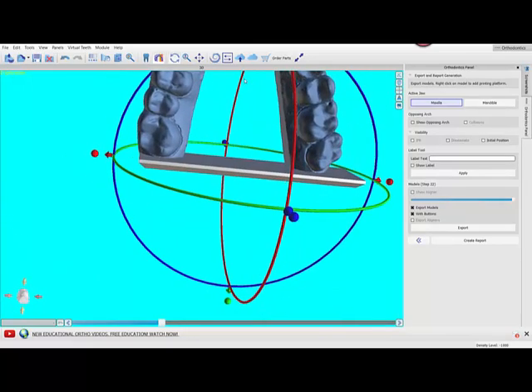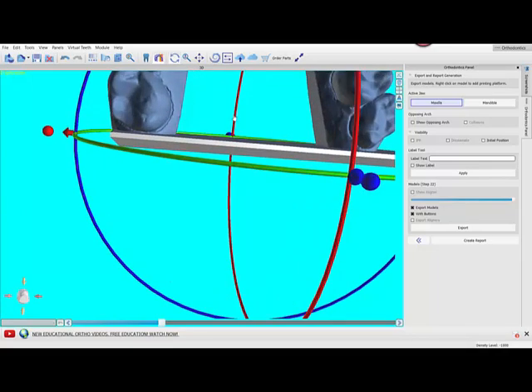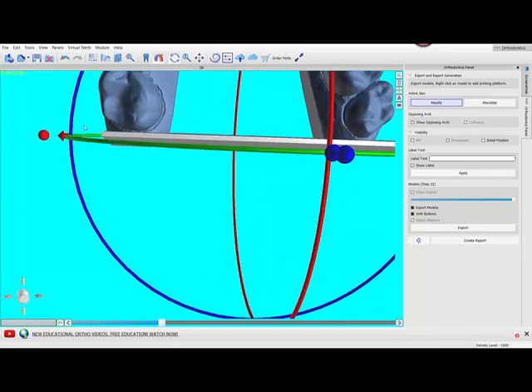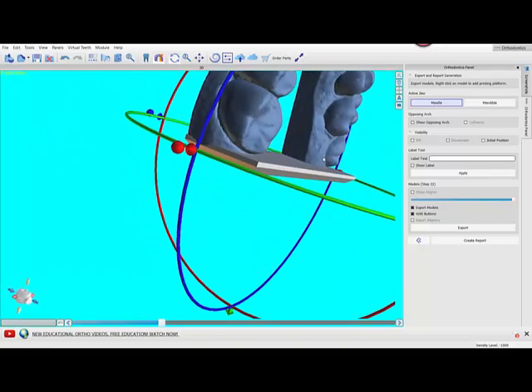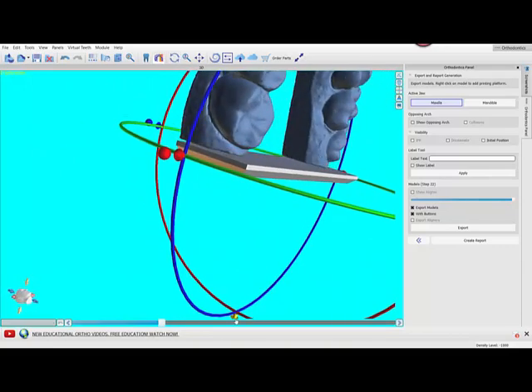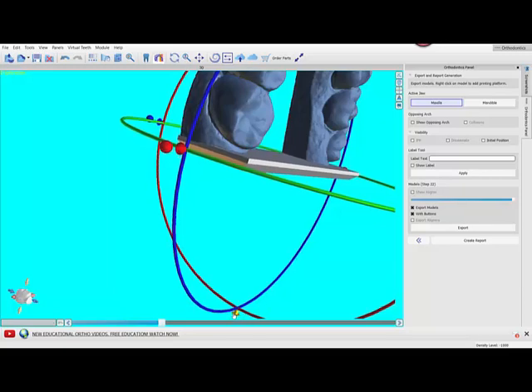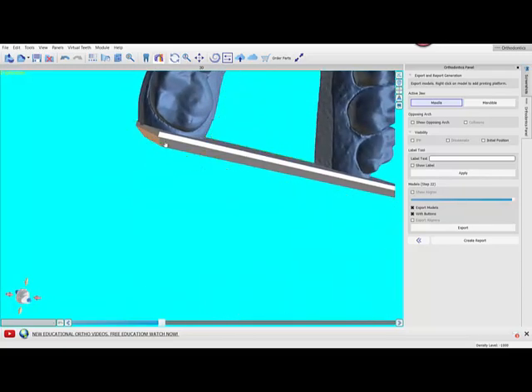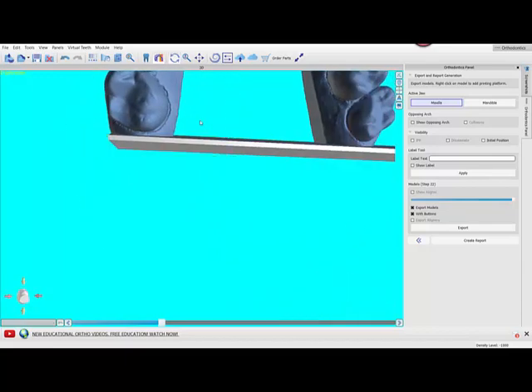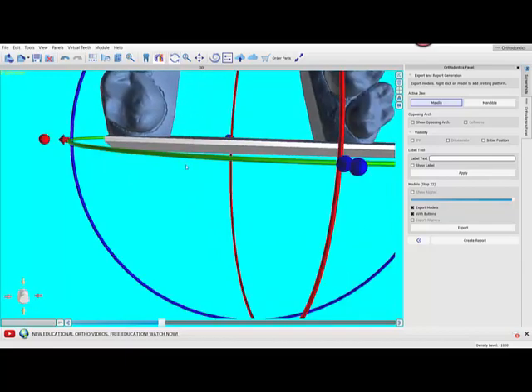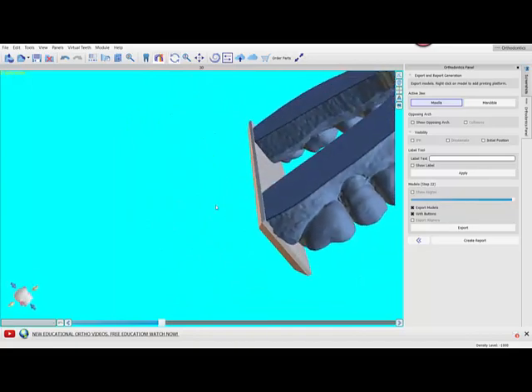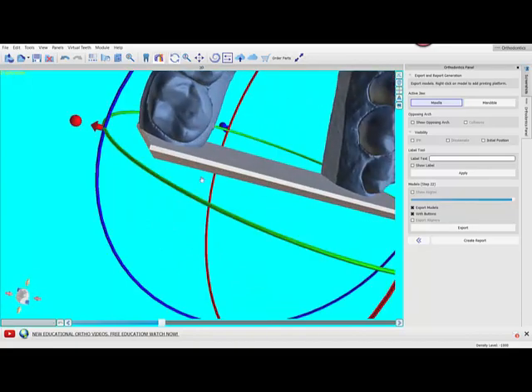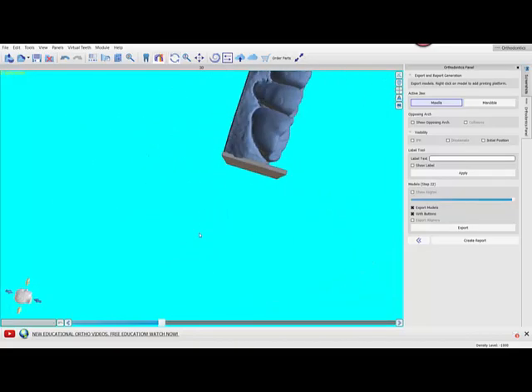Now if you think that it's too close to these heels and you can't get tray material around it, that's something to be aware of and that may cause you to not embed it so far. In a future version we should have it so the platforms automatically embed by one millimeter. It's better to have it slightly embedded so you don't have print failures. So that's the first thing I do—make sure the heels are embedded.